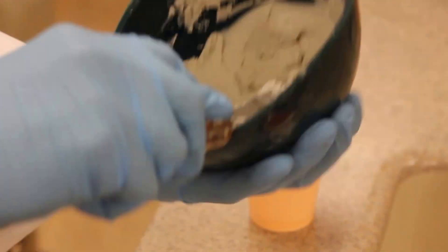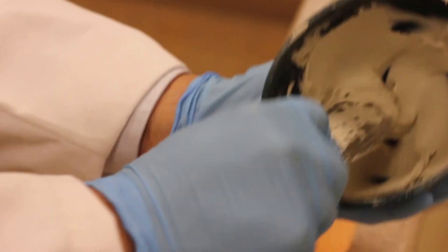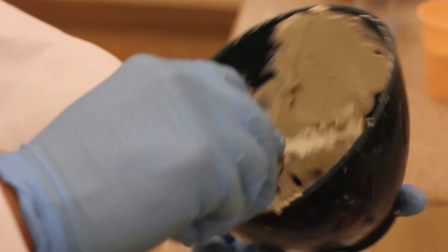So periodically I'll clean off what's on the back of the spatula like this and I'm rotating and really push. I'm rotating the bowl in one direction and applying pressure with the spatula in the other.